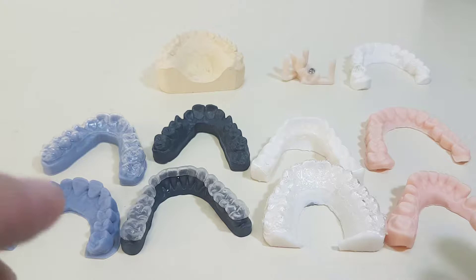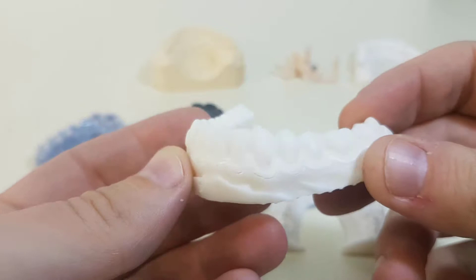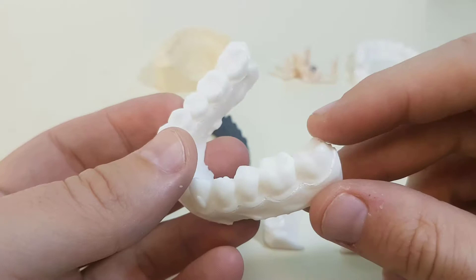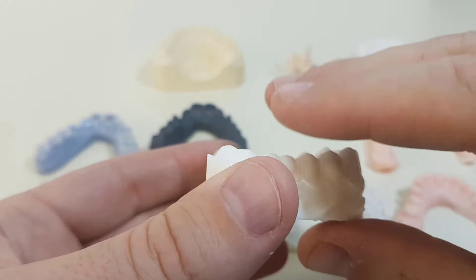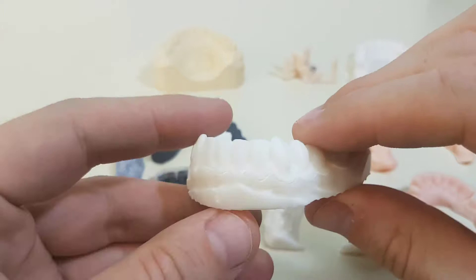I'd like to start with probably a very standard resin. This is from the Formlabs Form 2 machine, printed with Form resin. This is the white resin. I think this is kind of a bad choice because the color white tends to hide details. I know this wouldn't be a problem for thermoforming transparent aligners, but it is a problem if you want to verify the quality of your model. The white might hide small details, small problems that it would be better to see.